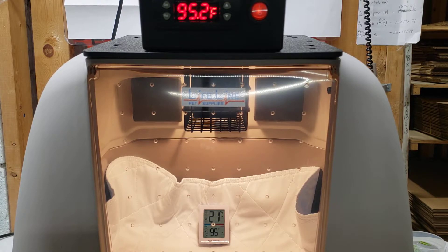What I'm showing you is how to calibrate the unit from the place where we take the sensor to the floor of the model — where the puppies or kittens are laying. Many of you may be thinking: why do we put the sensor up so high? Why not put it down where the puppies or kittens are? We've seen other incubator makers doing this, but our problem is that when puppies and kittens are small, anything that rubs against their face they tend to want to swallow — so it's a potential choking hazard. We feel it's best to keep it up at the back of the unit where the animal really can't get to it when they're small and in the incubator.